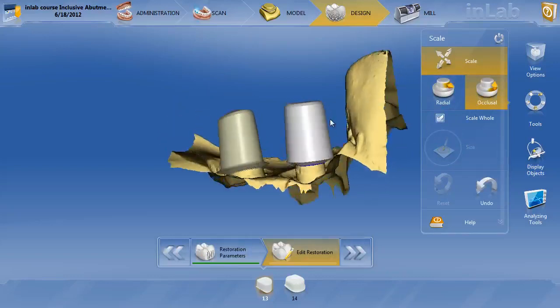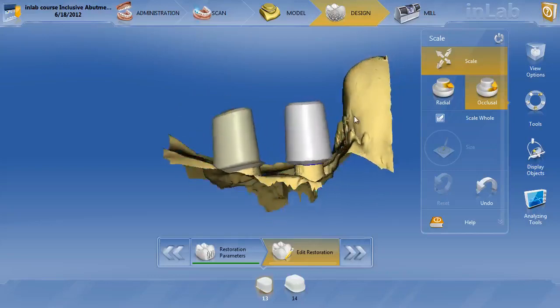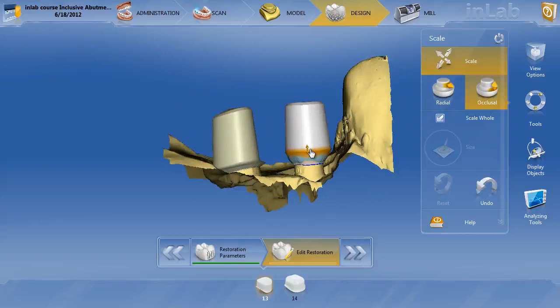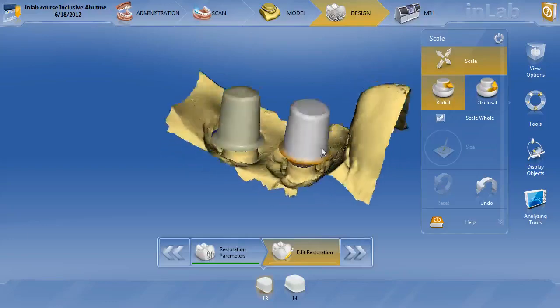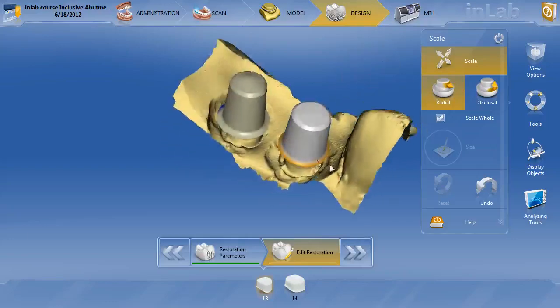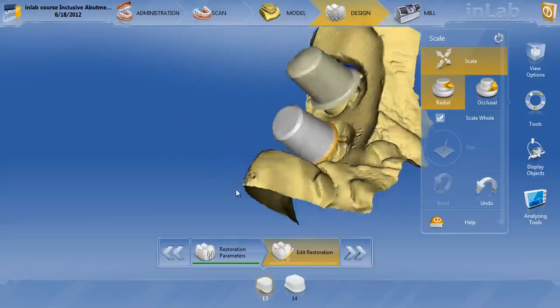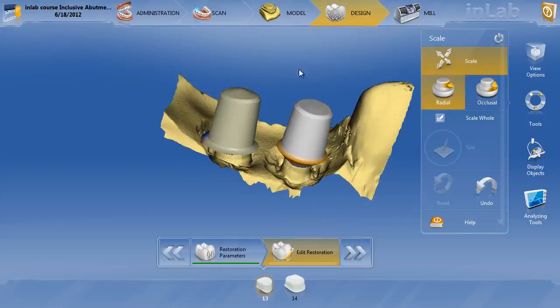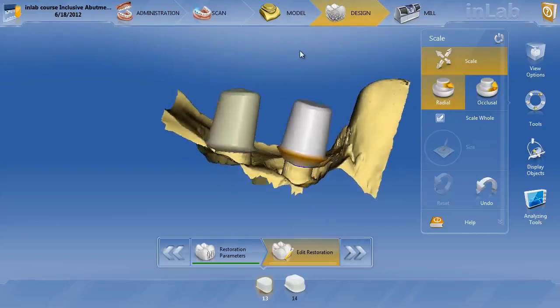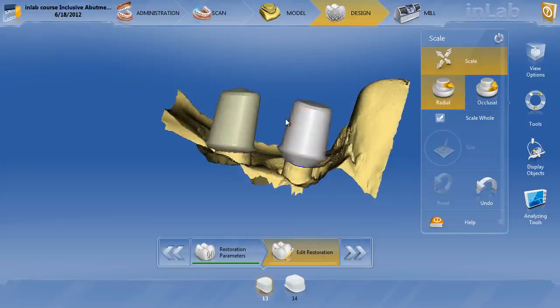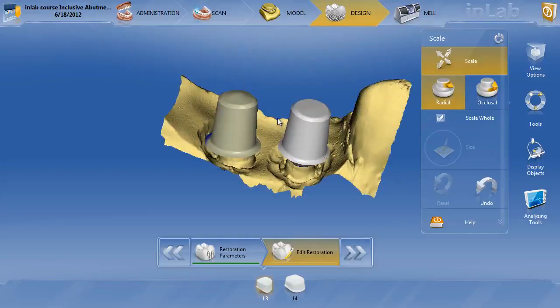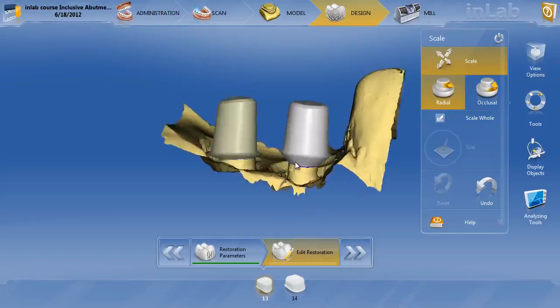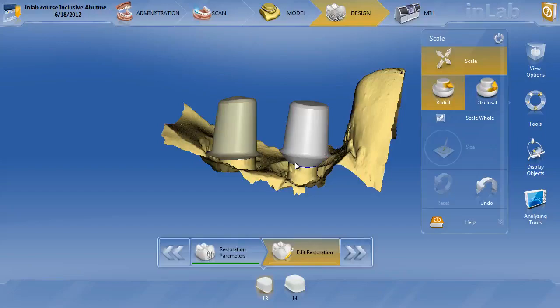You can then go ahead, if you want to control the margin, you can actually go down to the margin, move the margin up and down. Obviously, you're running in some minimal thickness issues, but that's easily fixed with the circular shape tool. Plus, say you wanted to move the margin up there, you can radially go ahead and make the margin bigger or smaller to get rid of that minimal thickness, and do the same on the other one. So this is what telescopes are all about. You can go ahead and use the six millimeter Glidewell tie base to go ahead and make parallel titanium, or excuse me, parallel telescopes to go ahead and make an Emax bridge. Just another option if you want to not do the Sirona method for making custom abutments, you can certainly make custom Emax abutments using Emax telescopes on the six millimeter Glidewell tie base.